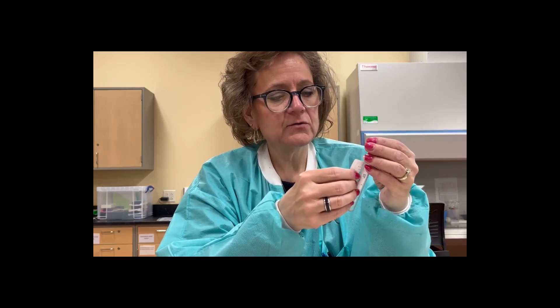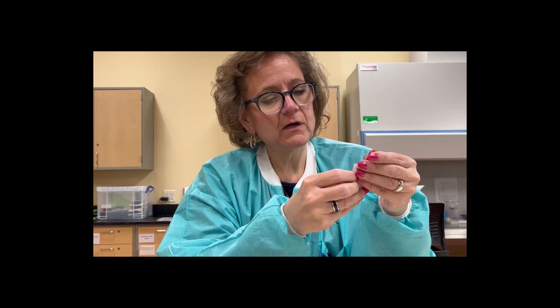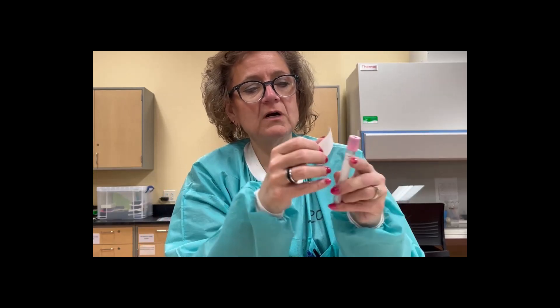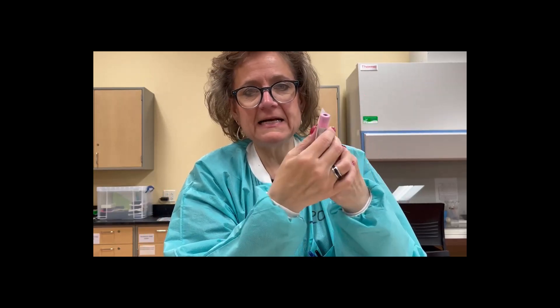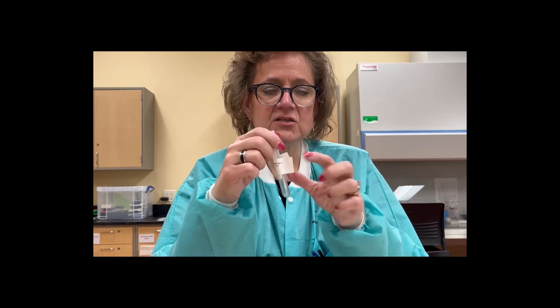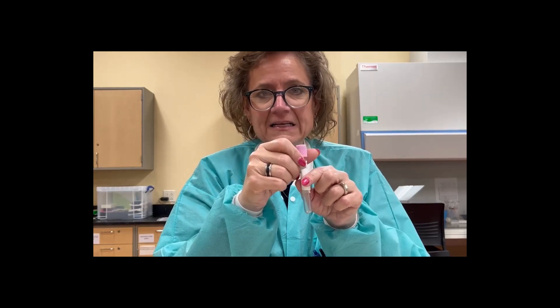So it's always really important to label it up and down, with that line over the actual label. Make sure when you're sending things to the lab that you don't just throw it on at a weird angle. Don't cover the lid. We don't want things like that because that's going to be a mess. We don't want you to wrap it around like this because it's going to get caught in our instruments and racks and cause problems.